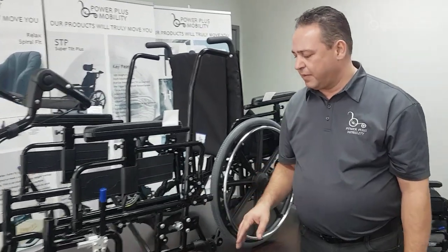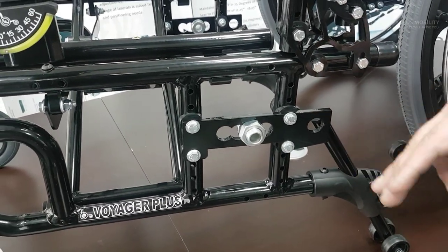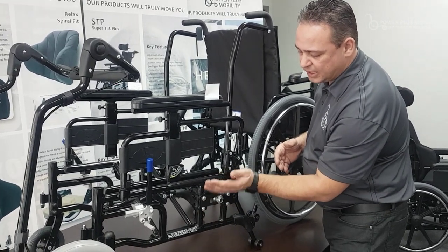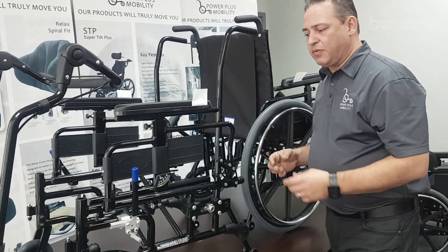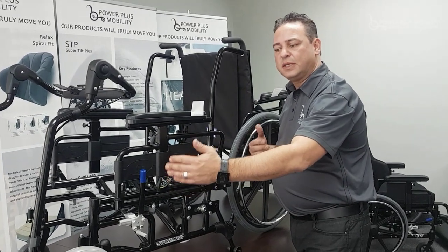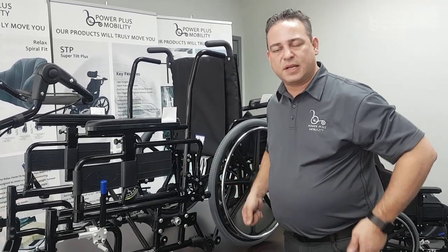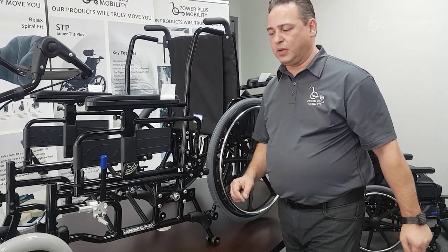Another type of axle plate we have is a horizontal axle plate on our Voyager — we also have it on the Magic Plus. There are two different frame types, one lighter than the other; this happens to be the heavier one. This plate is mounted horizontally, so we can adjust its height, move the wheels forward, or push them all the way back to stabilize the unit. For heavier clients or those needing extra stability, we want the wheelbase as far apart as possible to prevent tipping forward or back. For clients who need to turn in confined spaces or hand propel with hands at 90 degrees on the wheels, we move the axle as far forward as possible — that's why we have the adjustability in this chair.